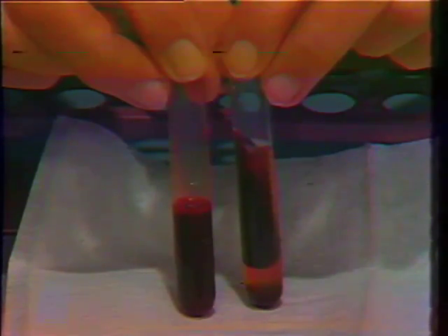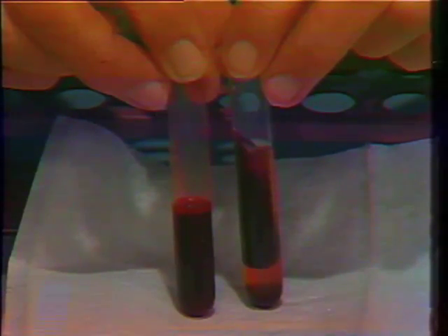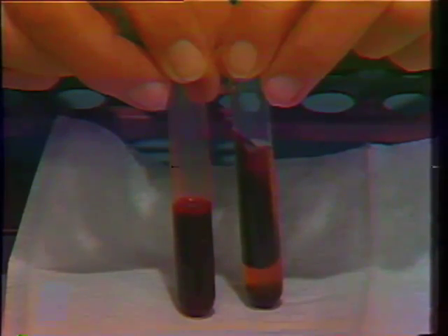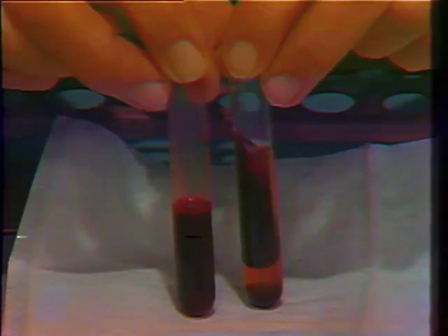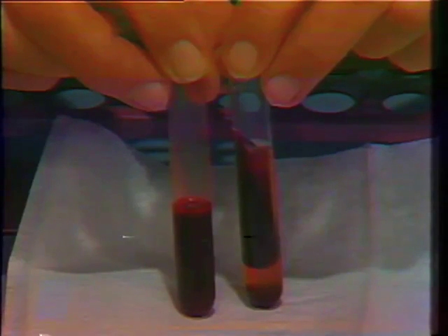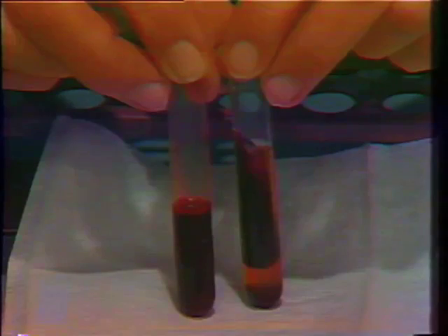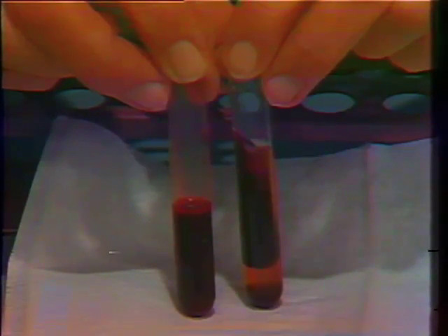The role of platelets in clot retraction was mentioned earlier. This can be tested by incubating freshly drawn blood at 37 degrees centigrade for a period of 24 hours. The specimen on the left shows freshly drawn blood, while the specimen on the right shows the blood after it has stood for 24 hours. The retraction of the clot away from the sides and the bottom is visible.